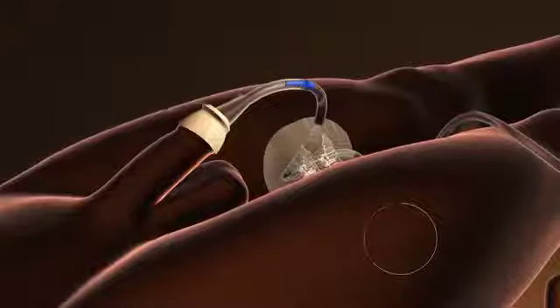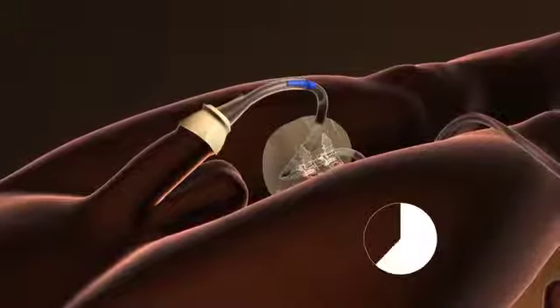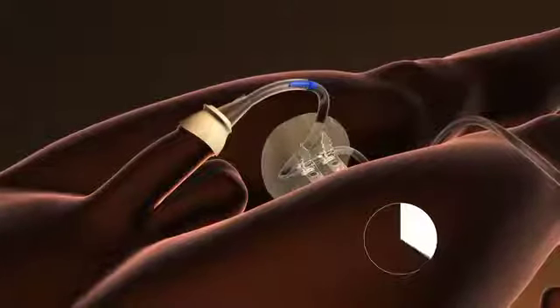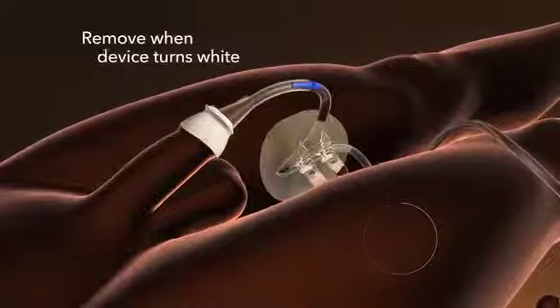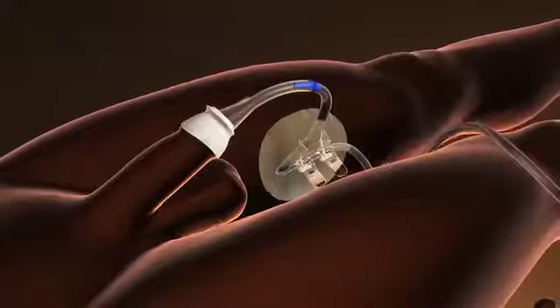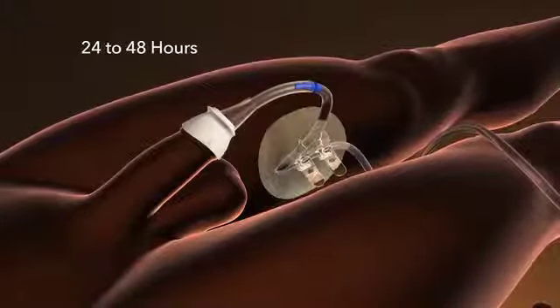The wear time of the initial application will be less than subsequent applications due to the moisture and natural oils in the skin. The device will turn white as it absorbs moisture and should be removed at this time. Subsequent applications will last for 24 to 48 hours.